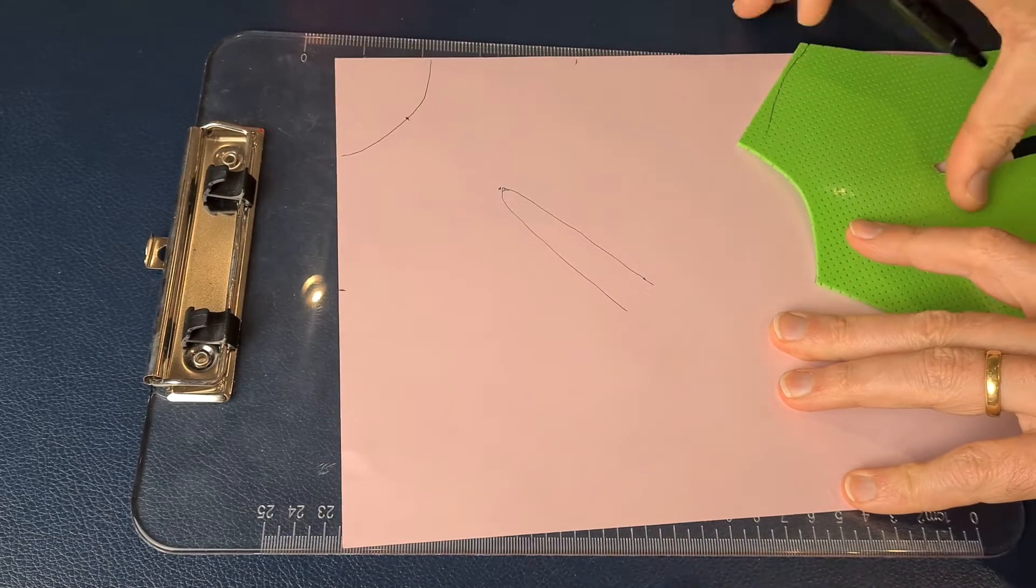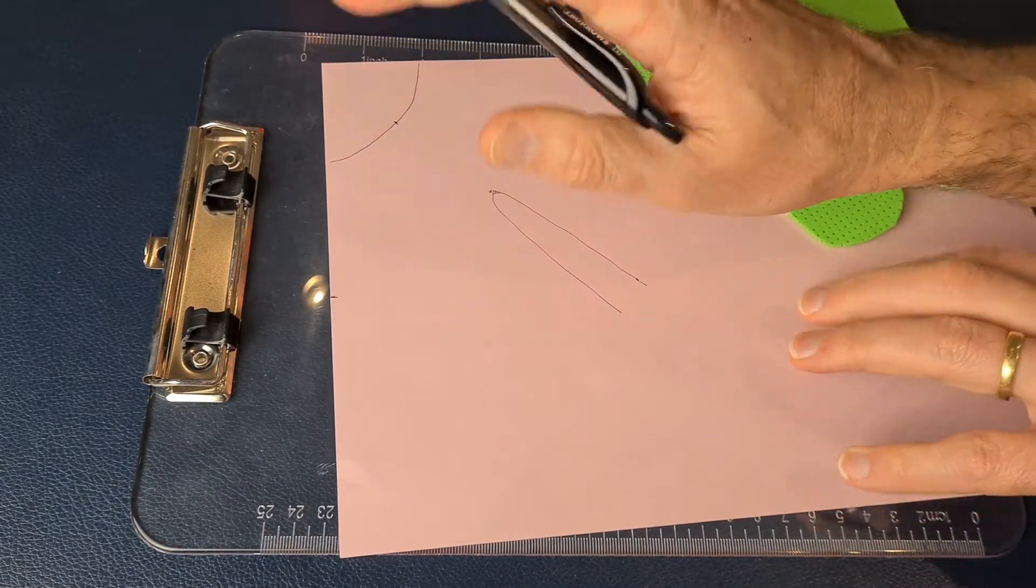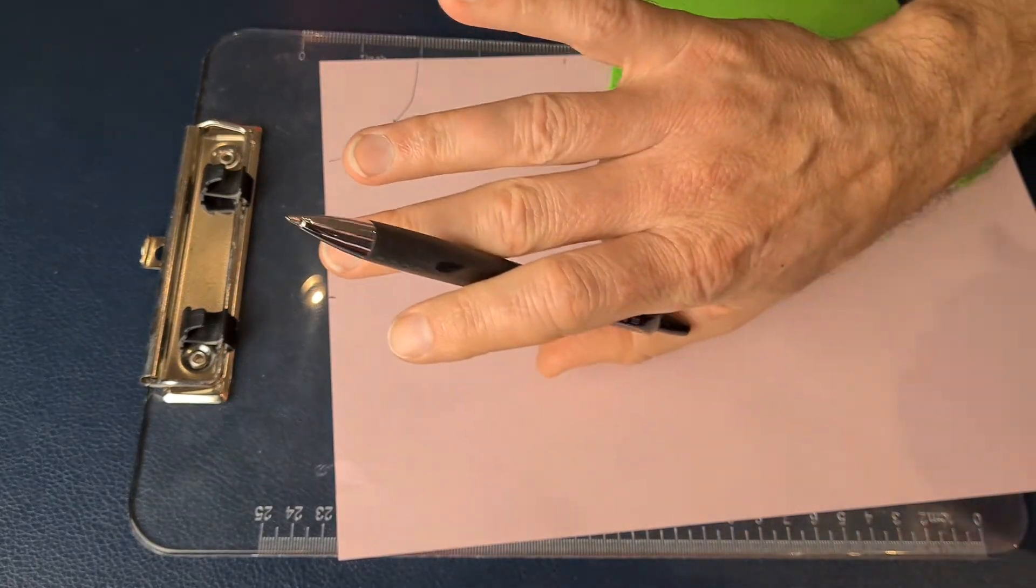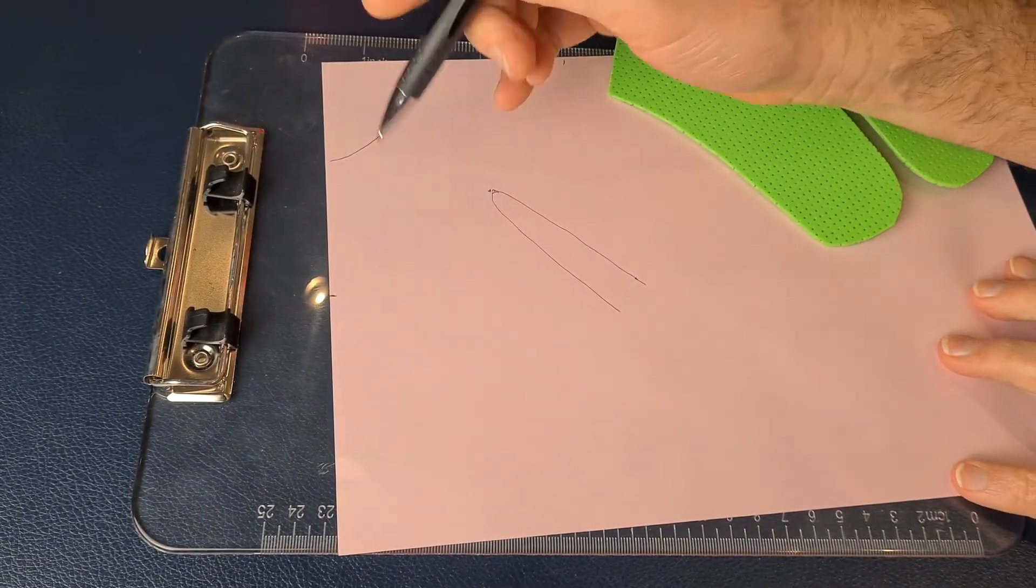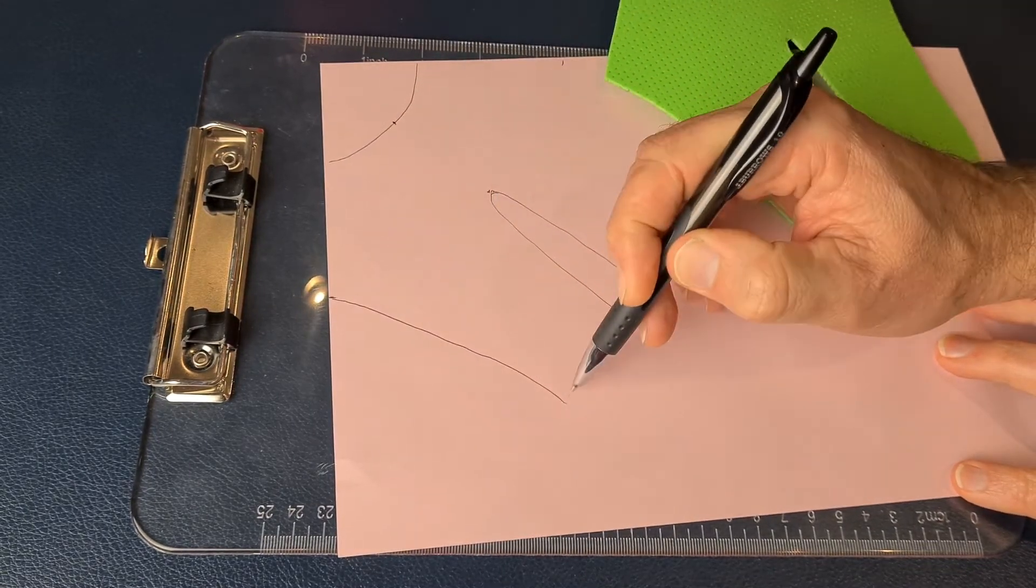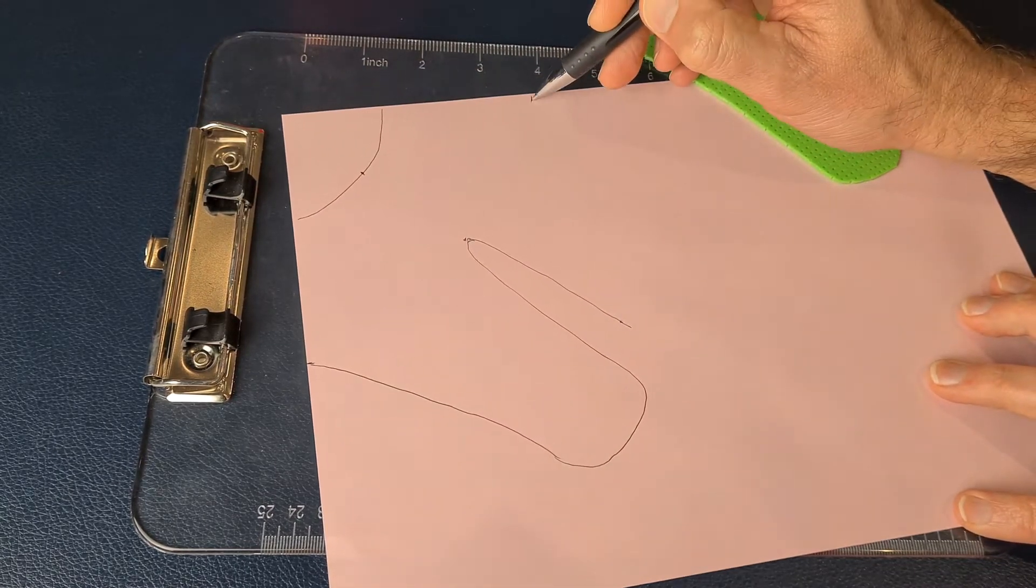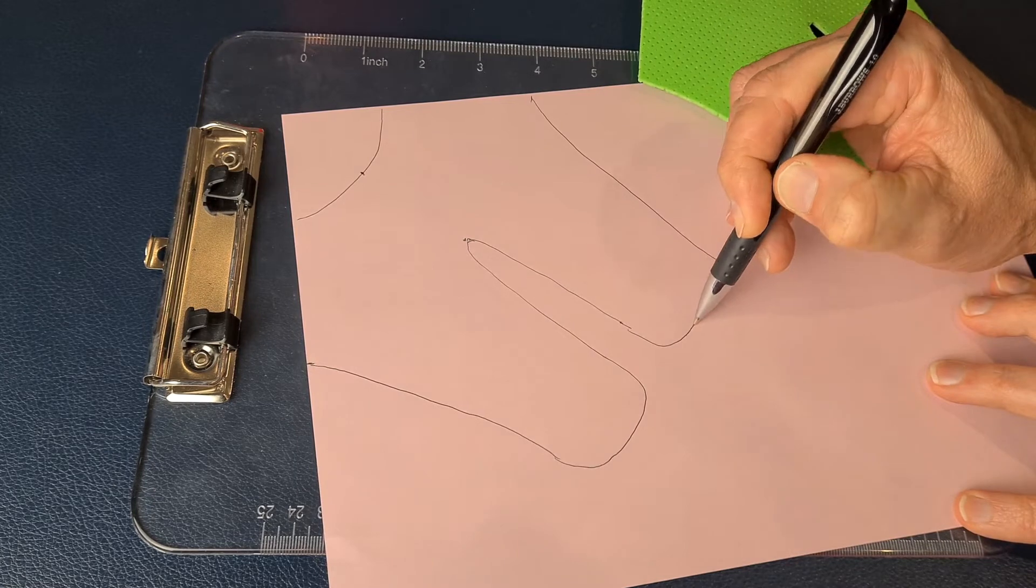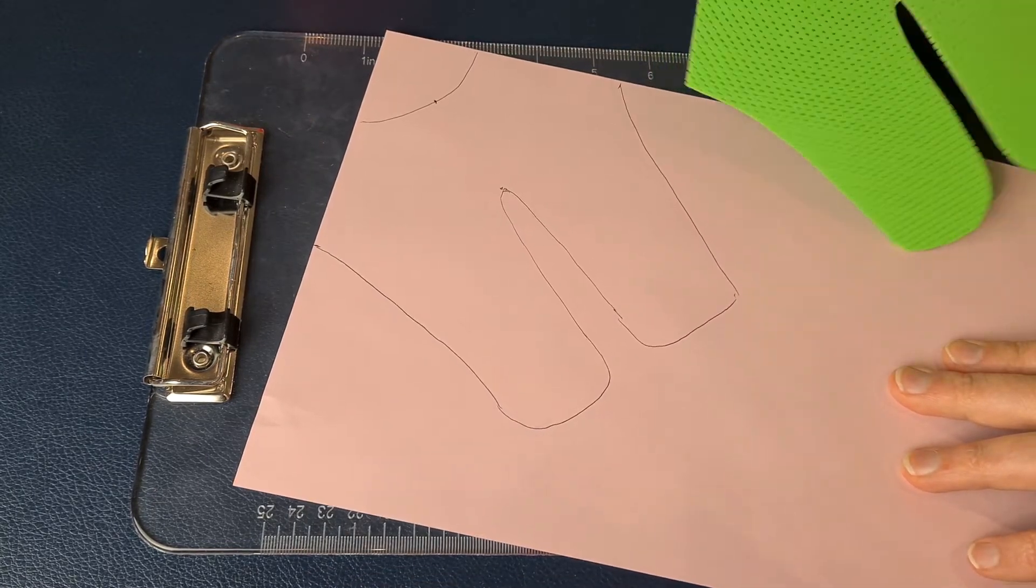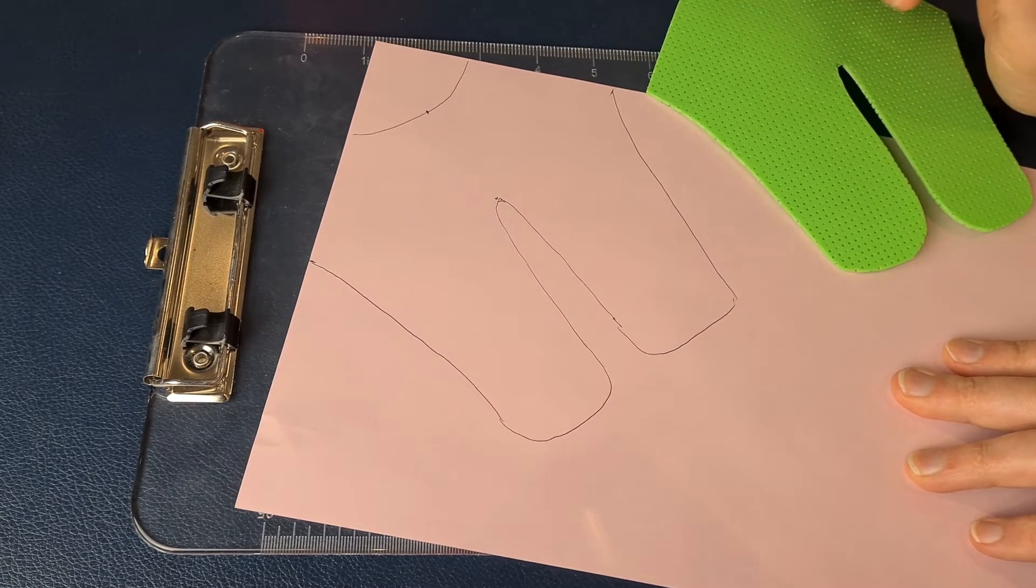Something like this, just slightly tapered, because your hand is narrower on the ulnar side than it is on the radial side. So it's going to be tapering slightly towards where the tabs are going to meet on the ulnar and dorsal side of the hand—something like this. And there's your splint, which will be roughly the right size for my hand.